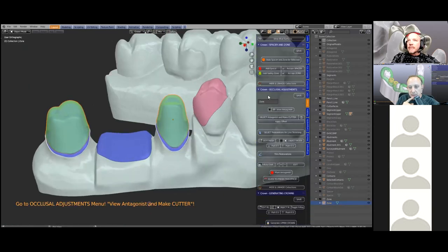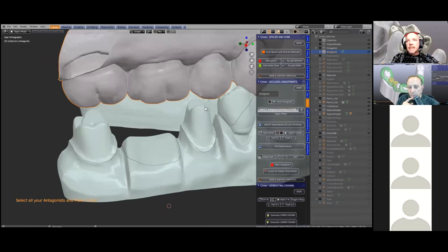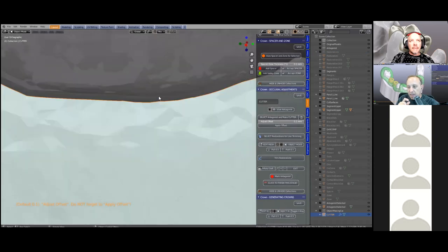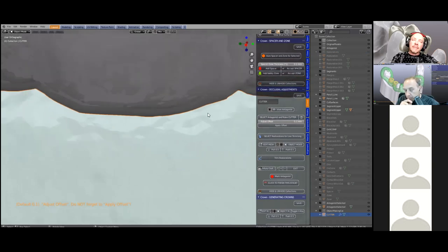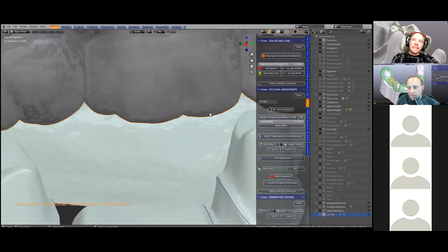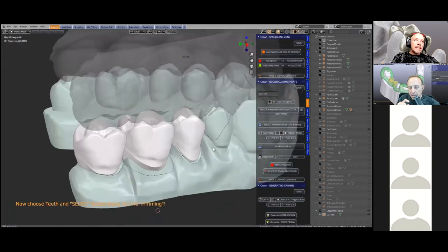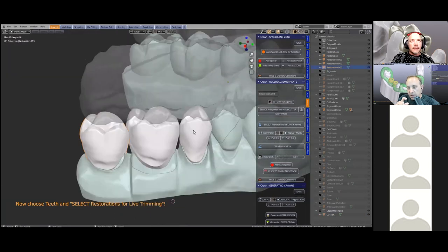From here Michael's going to bring back the antagonist. The next step is: from the antagonist scan we make a thin-shelled model and offset it — making it slightly bigger than what the scan currently is. It's set to 0.1 millimeter bigger. This will determine how heavy your bite is, so if you have zirconia crowns that are always high in bite, just increase that offset a little more. Essentially we're using that antagonist model as a cutting tool to cut out the occlusion.